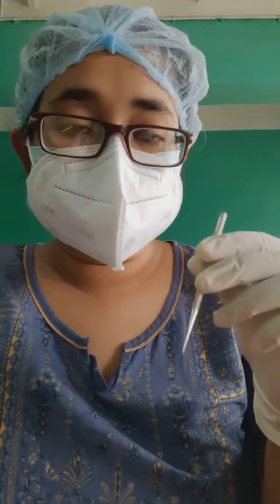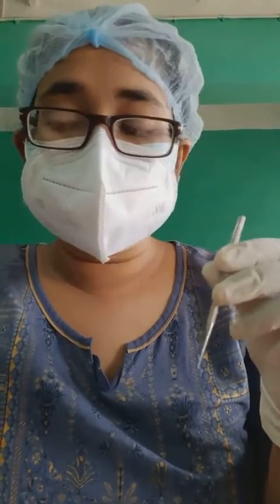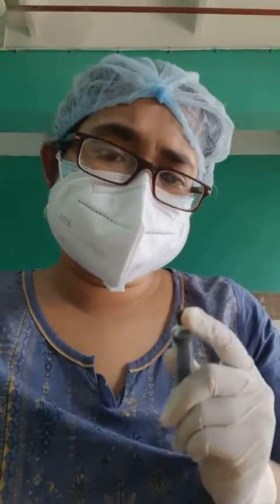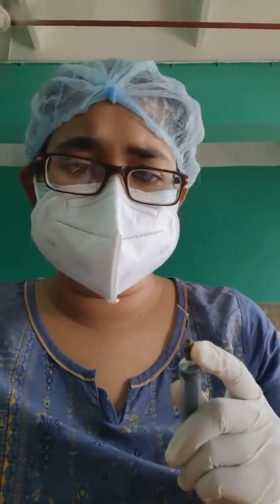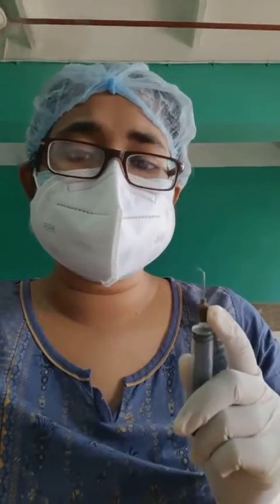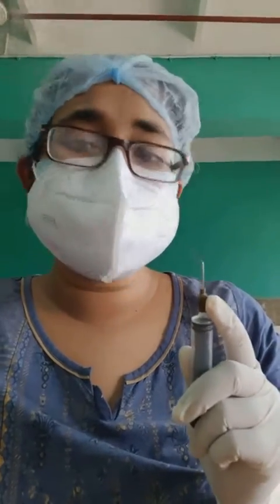After dilating the respective punctum, we bring this cannula. This is known as the lacrimal cannula, also called AC cannula — anterior chamber cannula. It is used for a number of purposes, one of which is syringing.